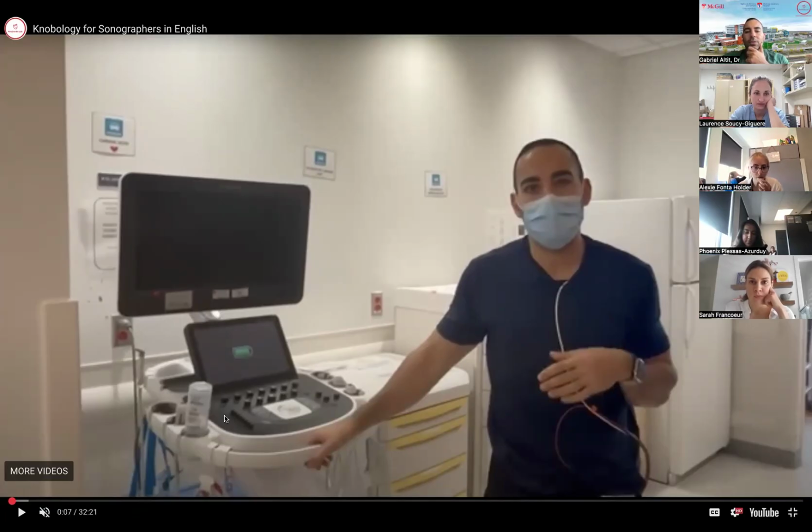If you move this to left or right, left means less gain or more gain, and it will change the gain only on the upper part of the screen. Versus if you move the lower portion, it will change the gain only on the lower portion of the screen. So you can, on your own image, adjust to have less or more gain, which is the amount of amplification of the signal, so that you kind of increase, quote unquote, the brightness regarding certain structures, which may be in the middle of your image or in the background, like the bottom of your image.